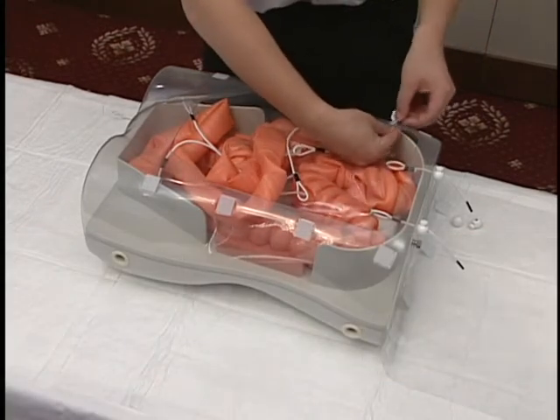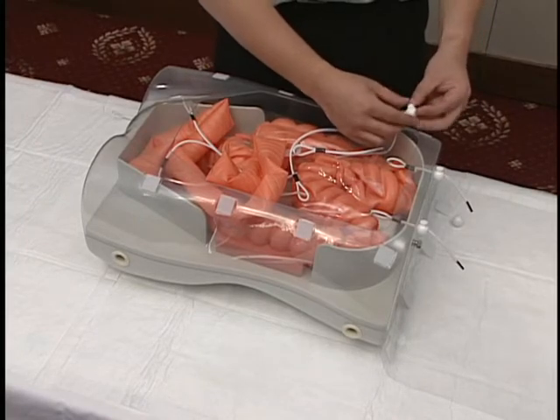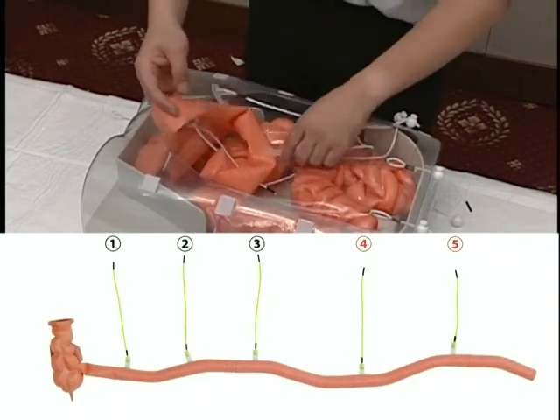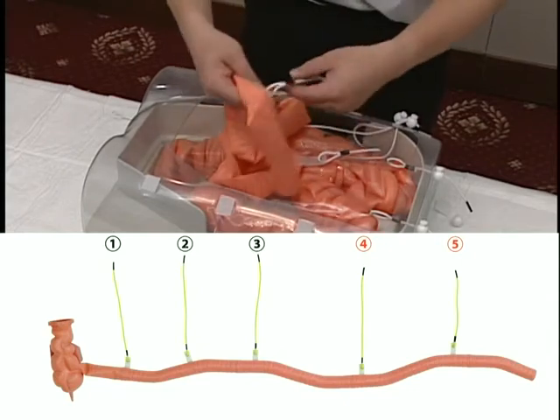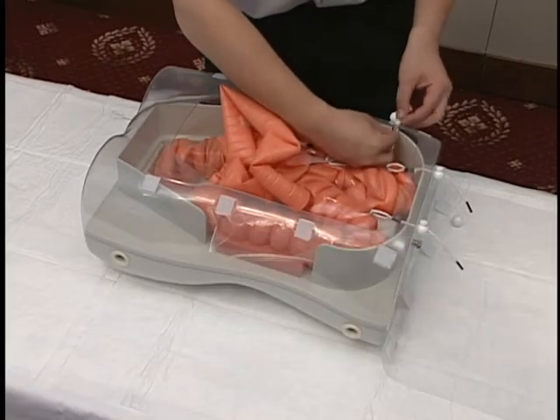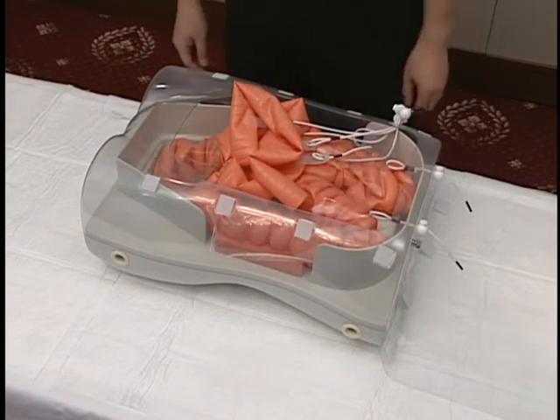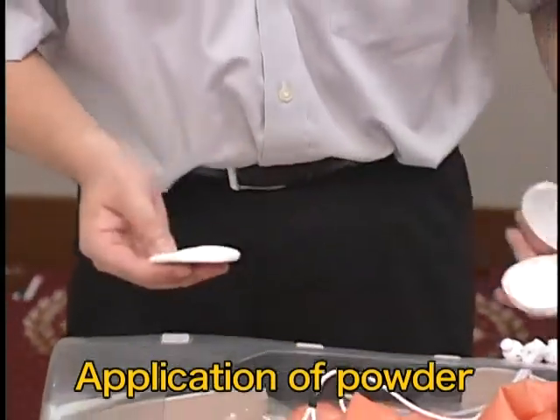Pass the rubber straps one at a time through the hole in the transparent cover and round stopper. Pass the fourth and fifth rubber straps from the ascending colon side through the hole in the transparent cover and secure in place with the round stopper. Apply powder to the outside of each intestinal section.